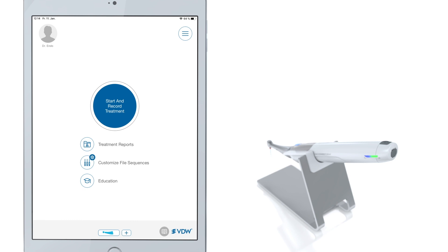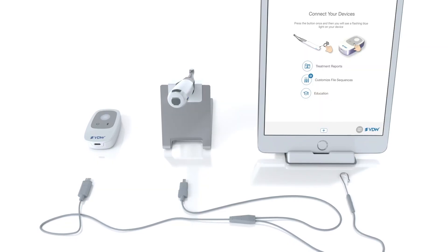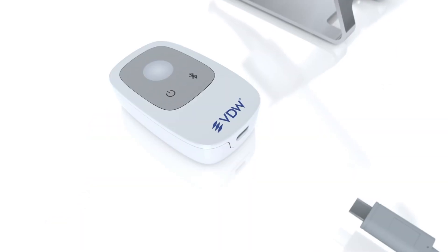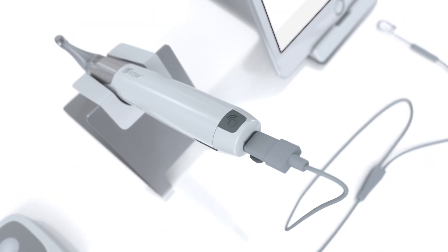To turn off the VDW Connect Drive, you have to click the handpiece icon at the bottom of the app and select Power Off. Now, physically combine both devices with the VDW Connect Drive adapter cable. The USB-C part of the cable goes into the apex locator, while the micro-USB part goes into the handpiece.